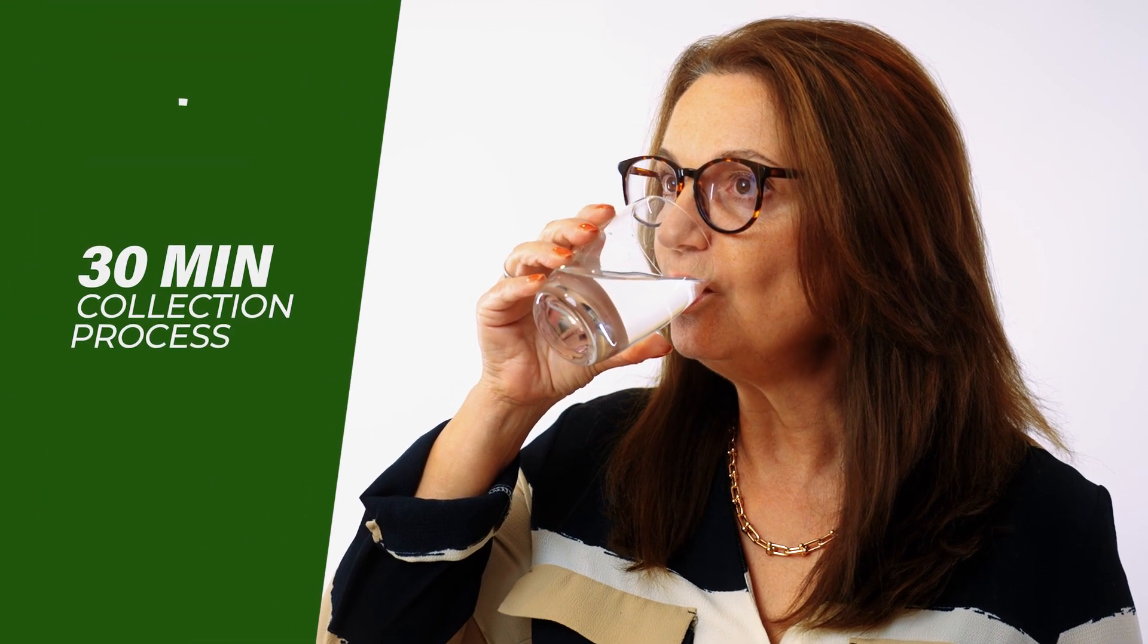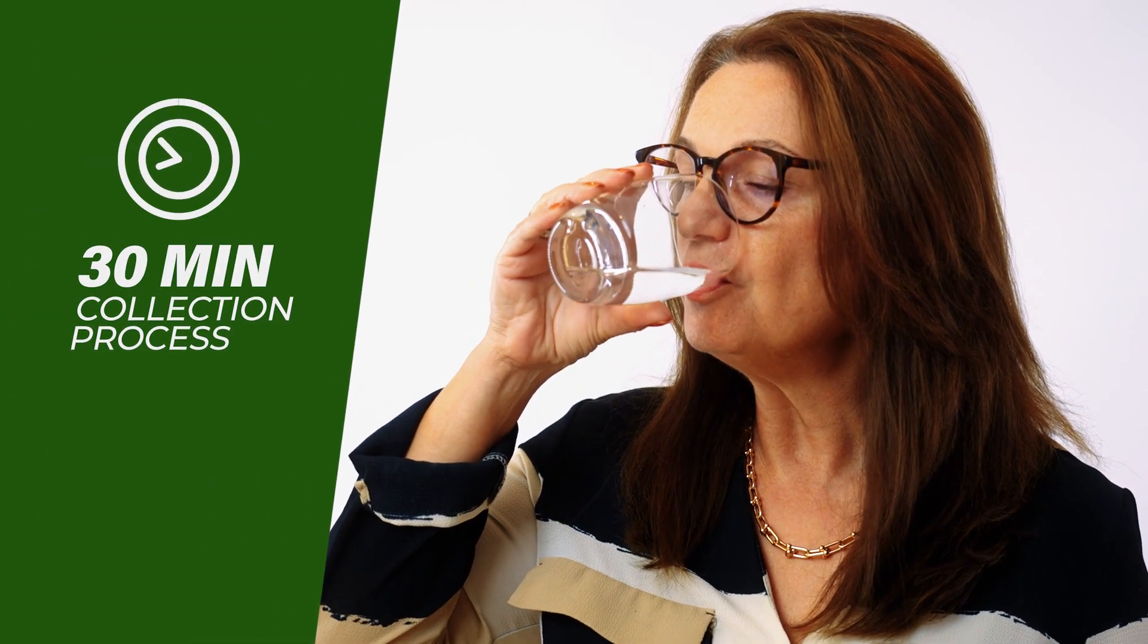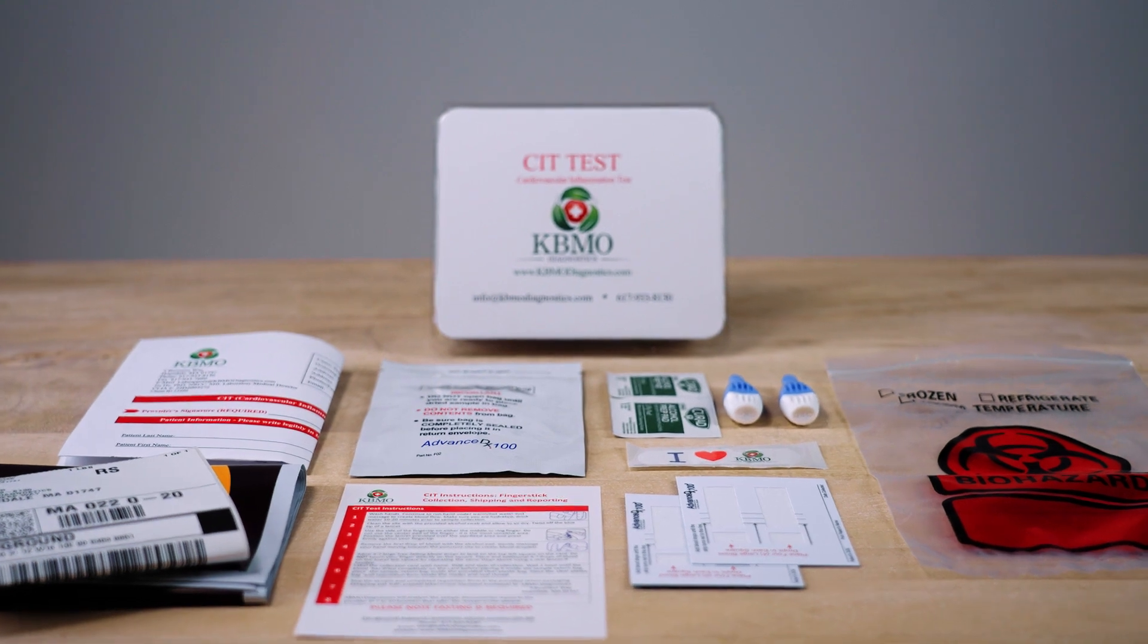The collection process may take up to half an hour, so please plan accordingly. Your kit contains the items shown here.